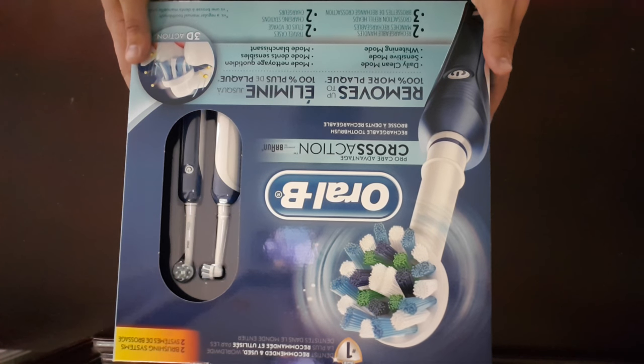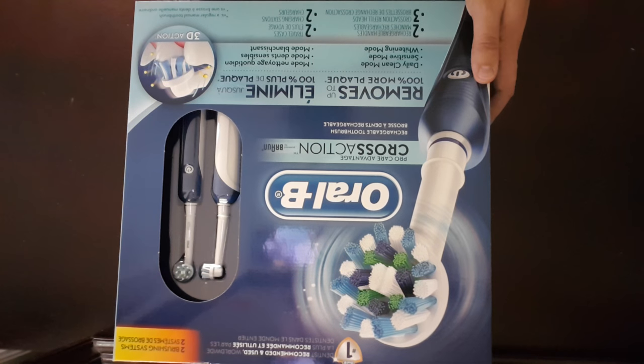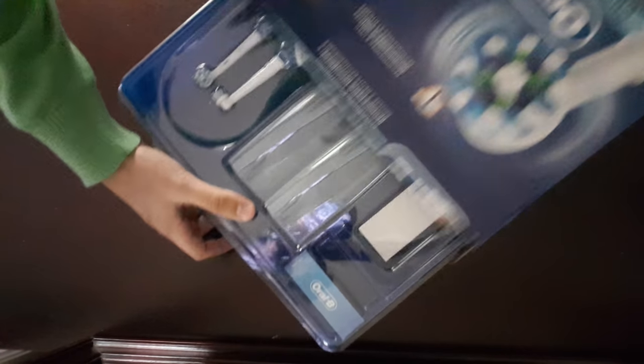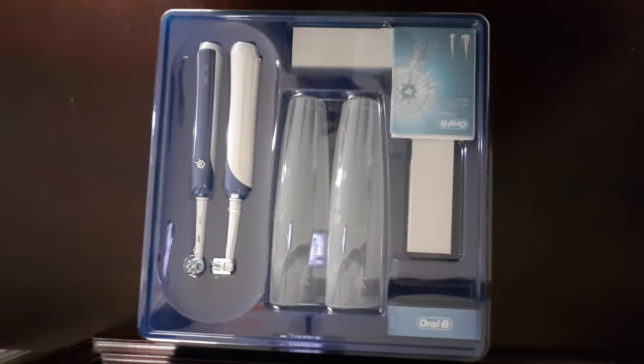Hey guys, this is the Oral-B ProCare Advantage Cross-Action Electric Toothbrush. I just bought it now, I thought I should do a quick unboxing so you guys can see what comes in here, let's go.